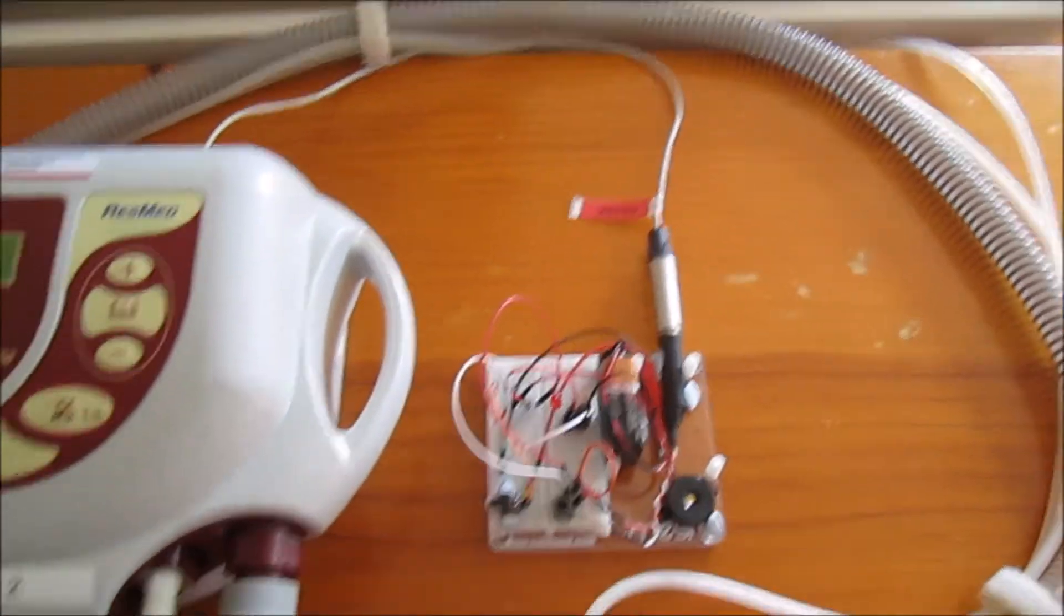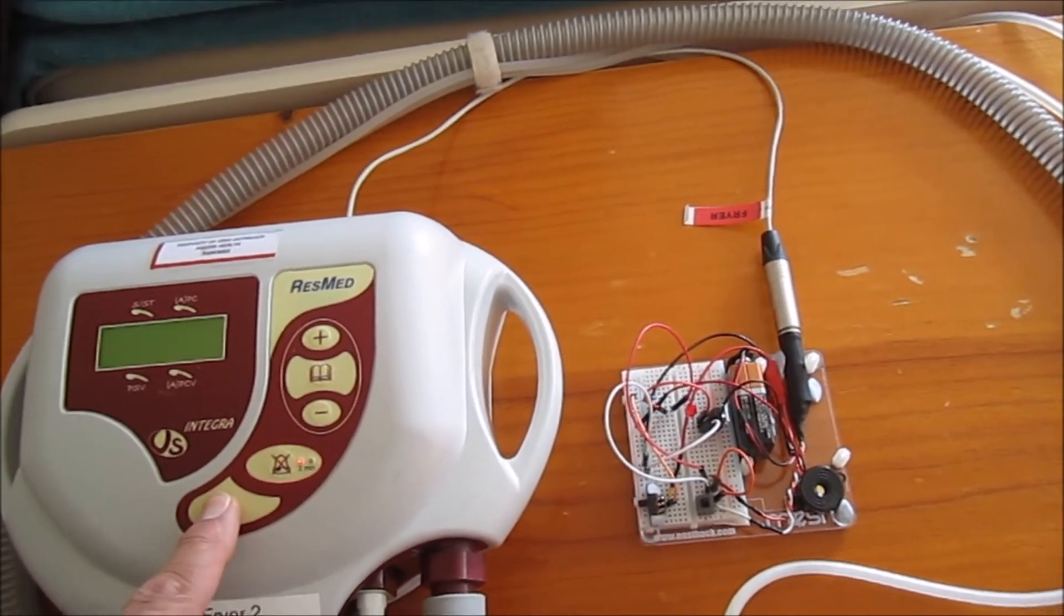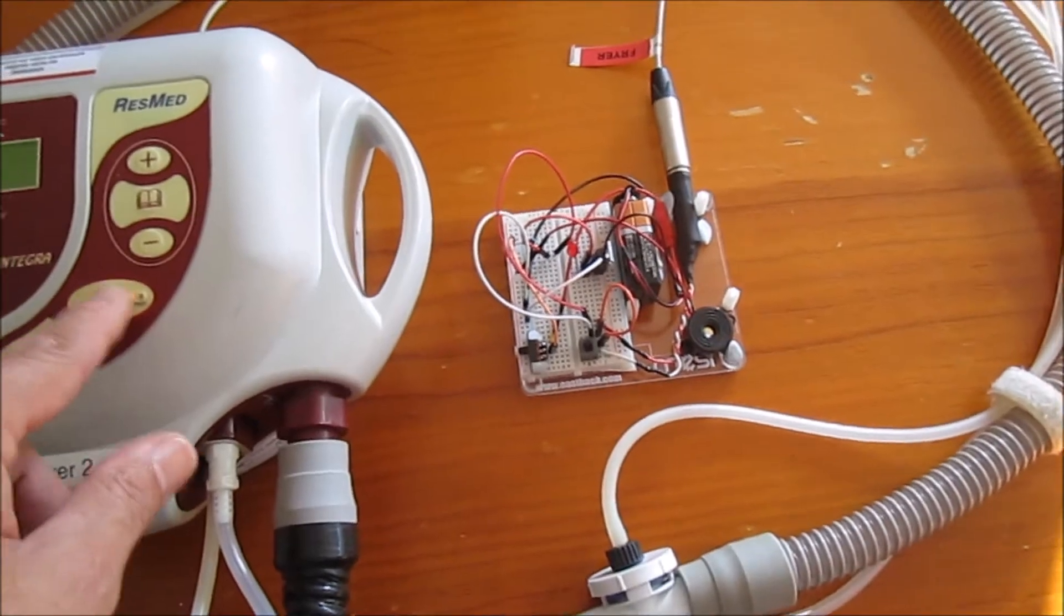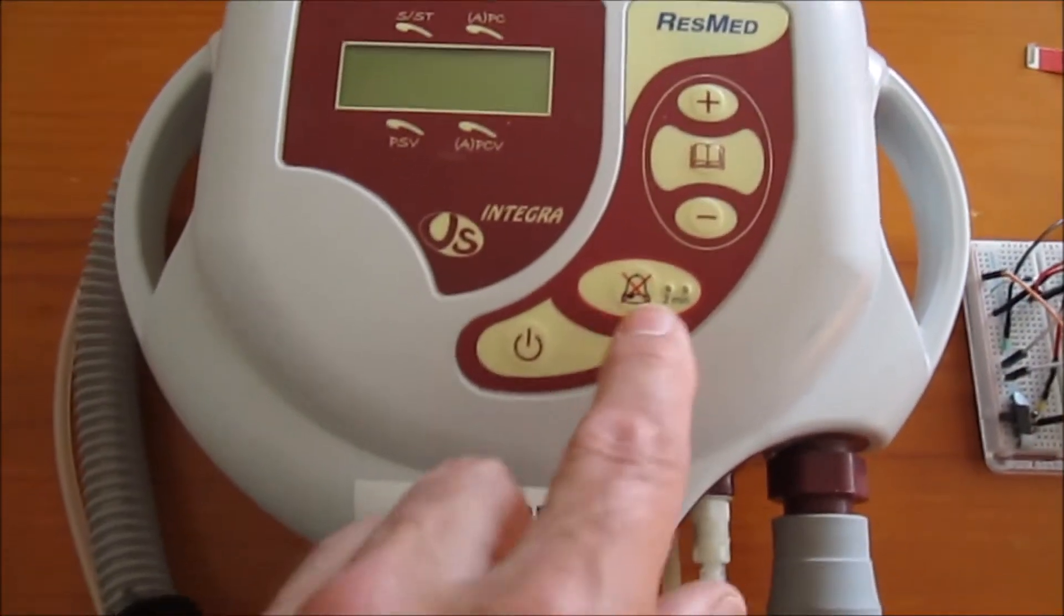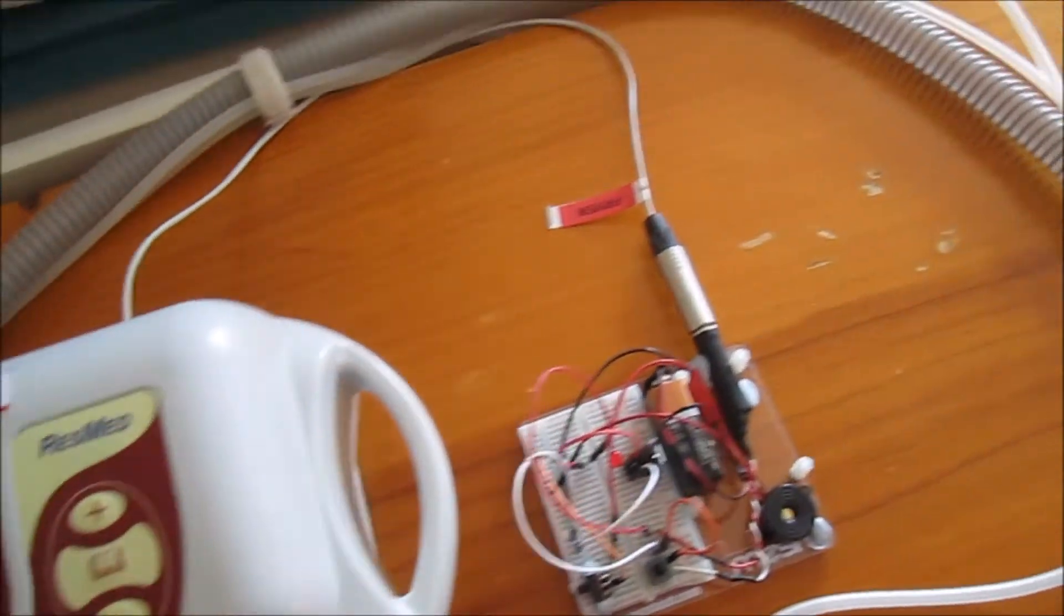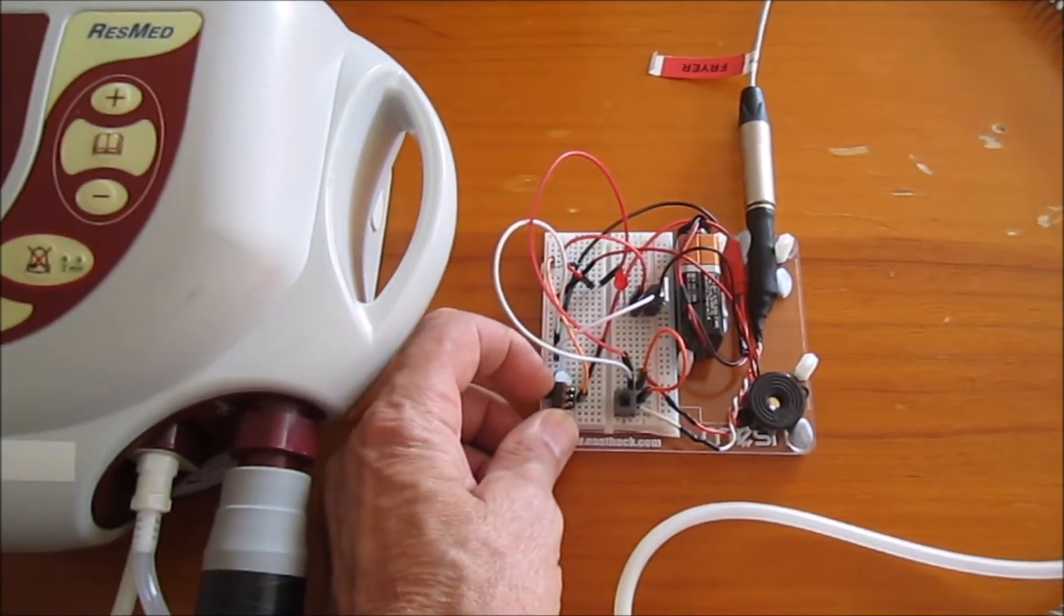Now if I shut the ventilator down, I'll demonstrate what happens. The alarm now goes off. The ventilator is turned off, no alarm showing. The only way I can stop this now is to actually physically turn it off.